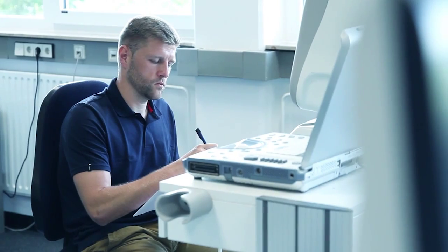Our ultrasound probe repair and maintenance services combine the expertise of a global diagnostic equipment manufacturer with the flexibility of a multi-brand support service.